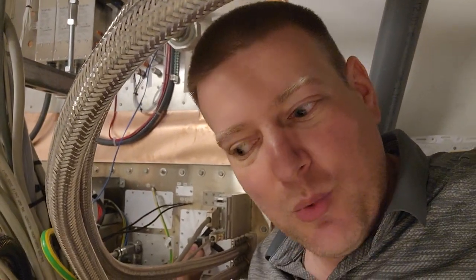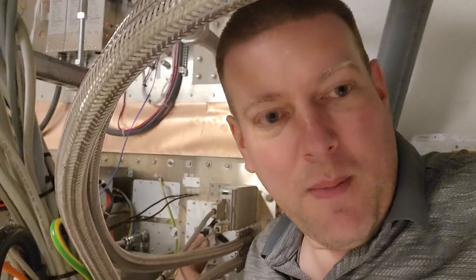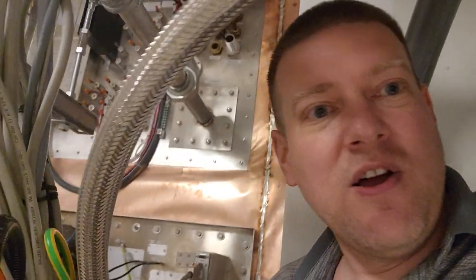We're going to do a series of videos on MRI in the future so that you guys know about radio interference and how everything's shielded. You can see the massive amount of copper behind me and all these plates that have an incredible amount of fasteners on them — that's all for a reason: to block EMI, which can affect the scan dramatically. Even those tubes are engineered at a specific length because a certain length of tube is going to stop and absorb pretty much any radio frequency that goes into it.